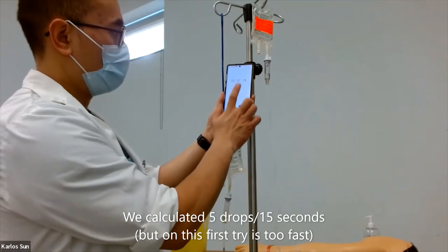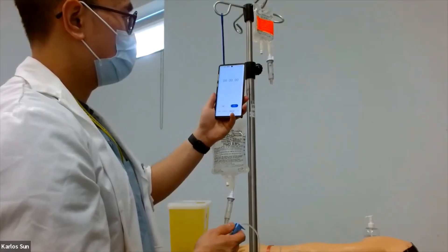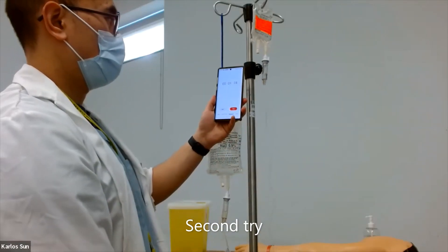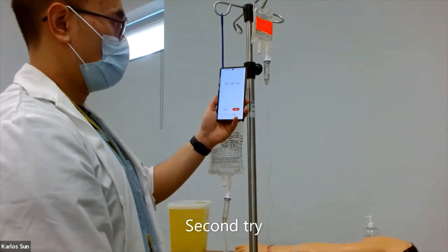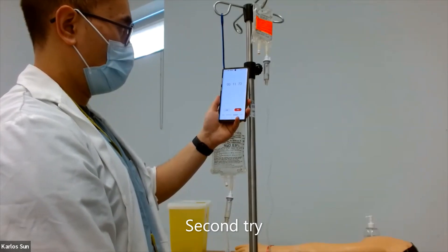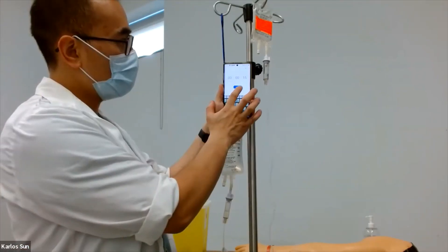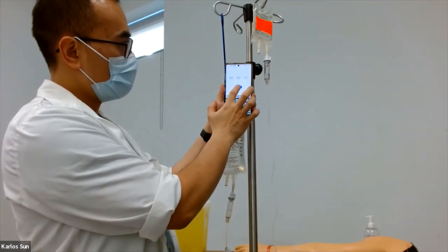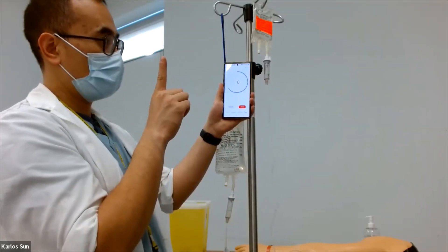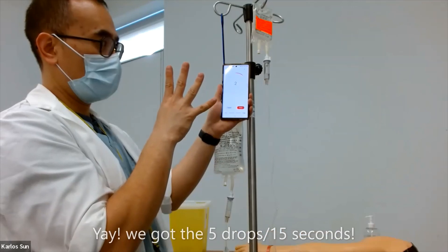On this try, the infusion was too fast. Let's try it again. I think we got it, but let's double check. First drop starts the timer. One drop. Two drops. Three drops. Four drops. Five drops.